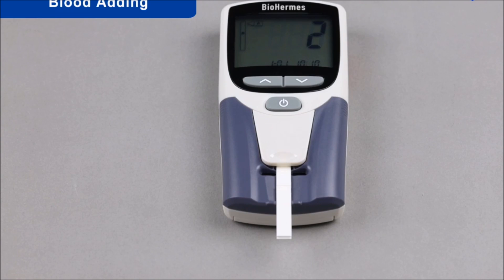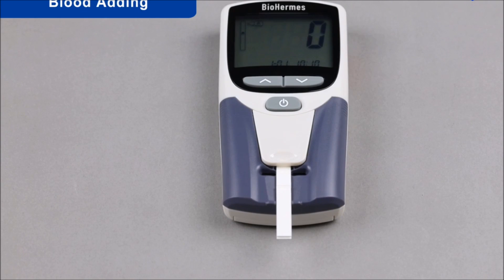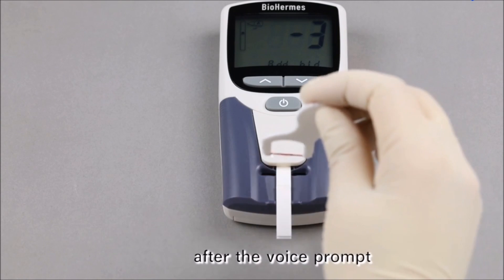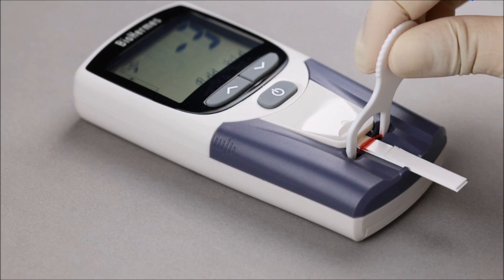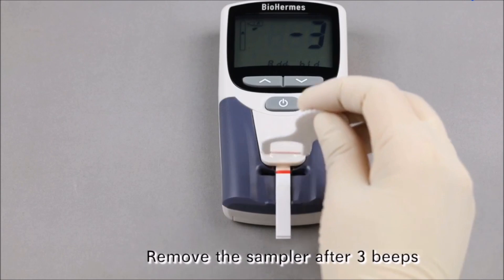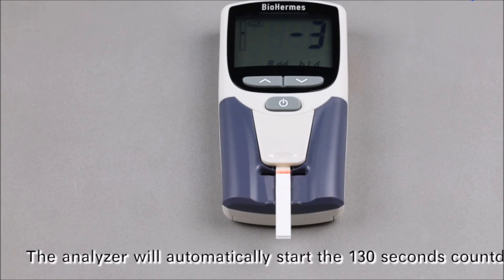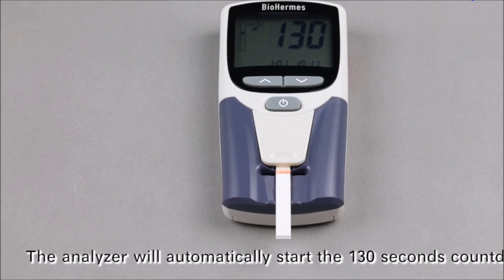Blood Adding: Please apply the blood sample. Add the blood sample to the sampler port within 5 seconds after the voice prompt. Remove the sampler after 3 beeps. The analyzer will automatically start the 130-second countdown.